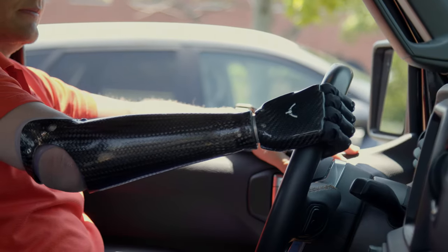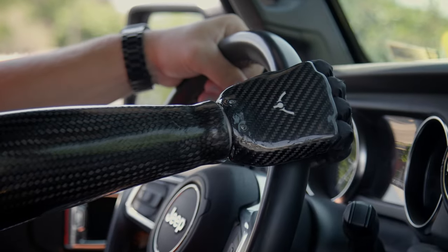It's the small things, things that you wouldn't think that you would miss. It's those things that you take for granted a lot of times. The ability to know that you have something in your right hand. I can actually drive with this on the car and just steer.